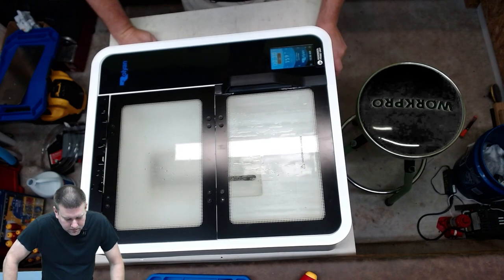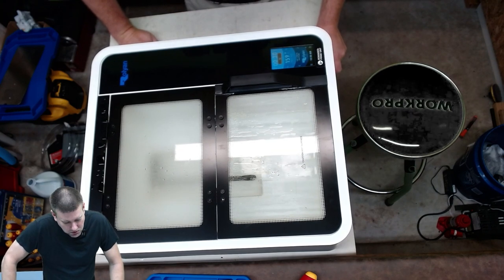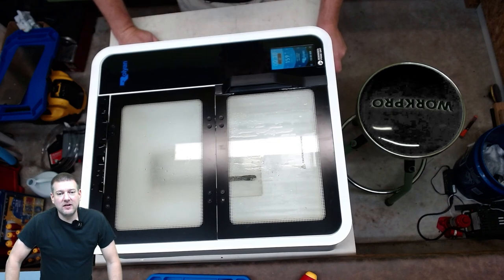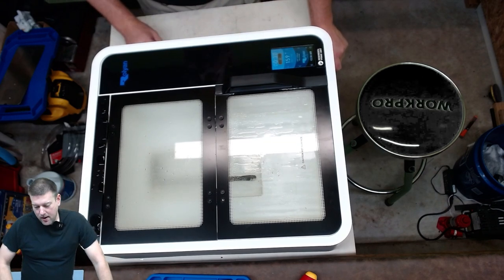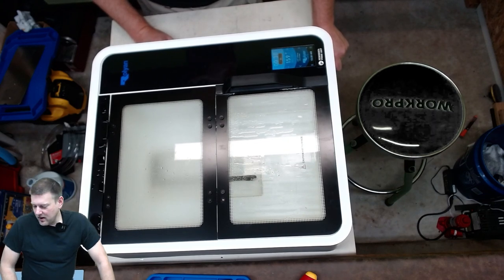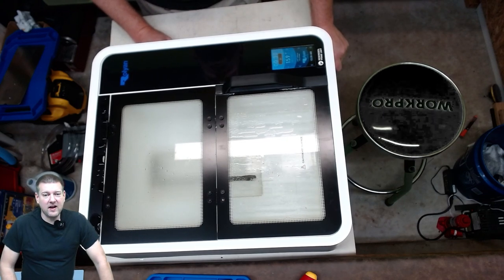This is at temp. I'm not seeing any water pooling up in here — it appears to be very dry. I'm going to check the temperature. It's set at 155 and it's currently sitting at 158 degrees, teetering up and down a little, probably because I opened the lid. The tempered glass helps hold in the heat. The hinge design allows water to trickle back into the chamber as it condensates. However as we can see there is a design flaw. The touchscreen is working great and everything on this guy looks like it's working perfectly fine. I'm just going to verify the temperature and get this guy back out in service.